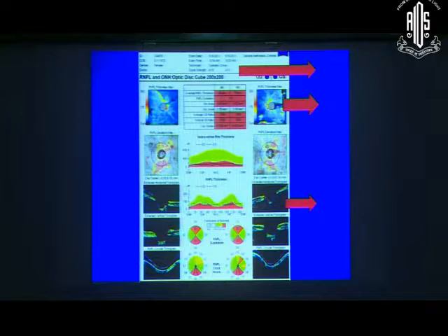Then just take a look at this. Your scan is probably not well centered or the patient has been sitting awkwardly. So this is a sort of scan with multiple abnormalities on it which you don't really need to use for interpretation. You need to repeat the scan and see whether you can get something better.